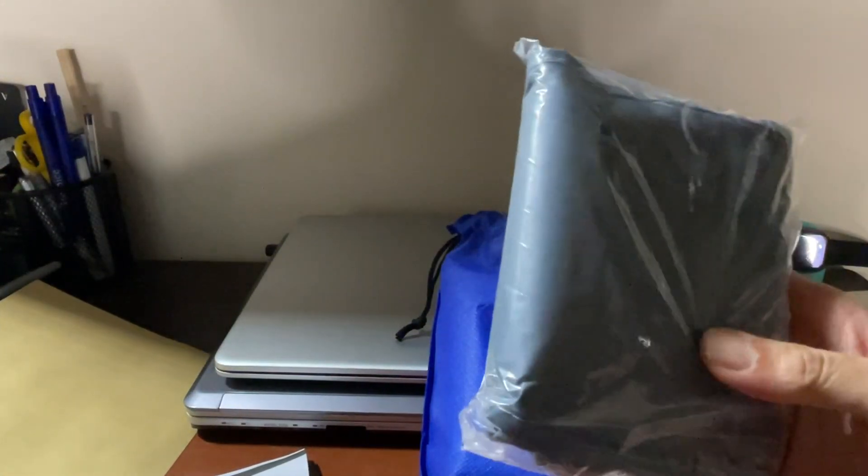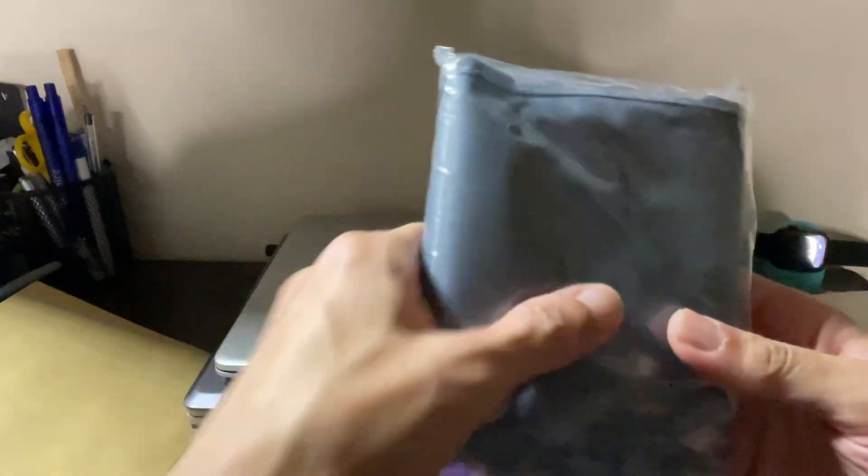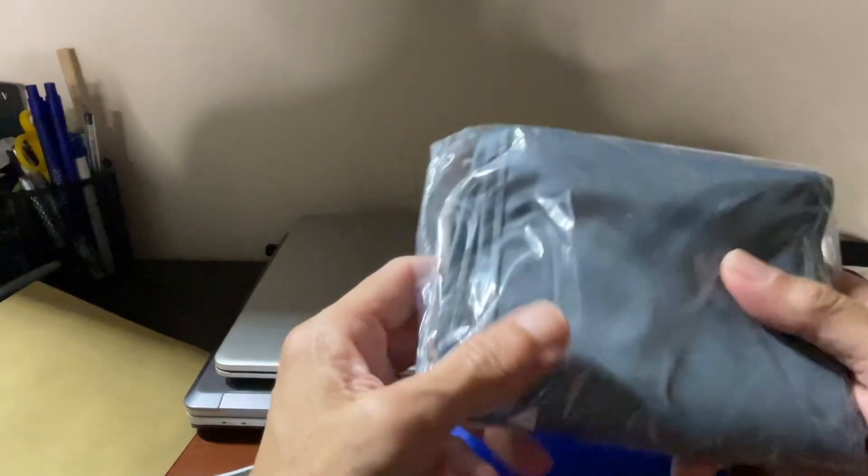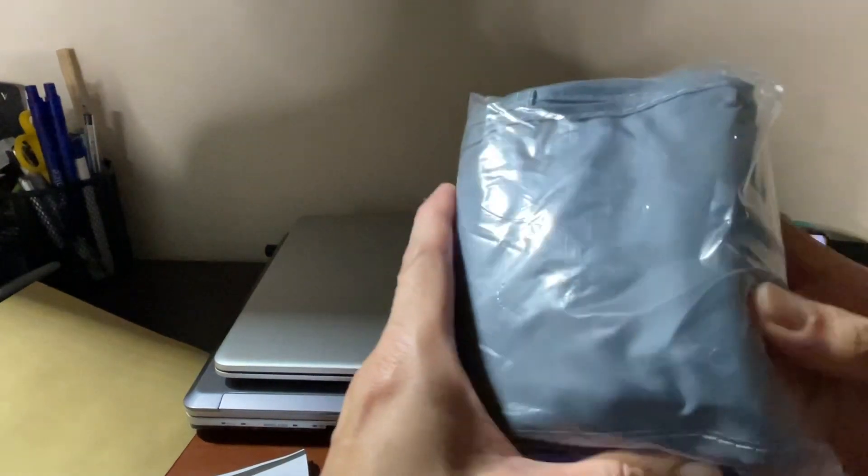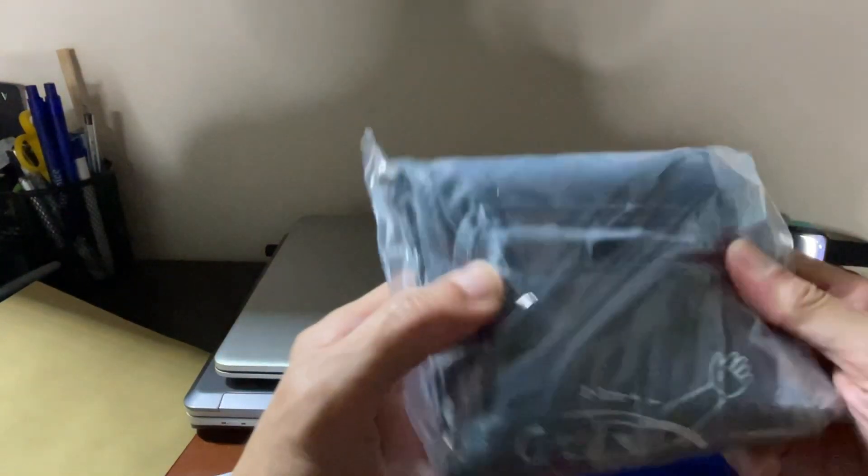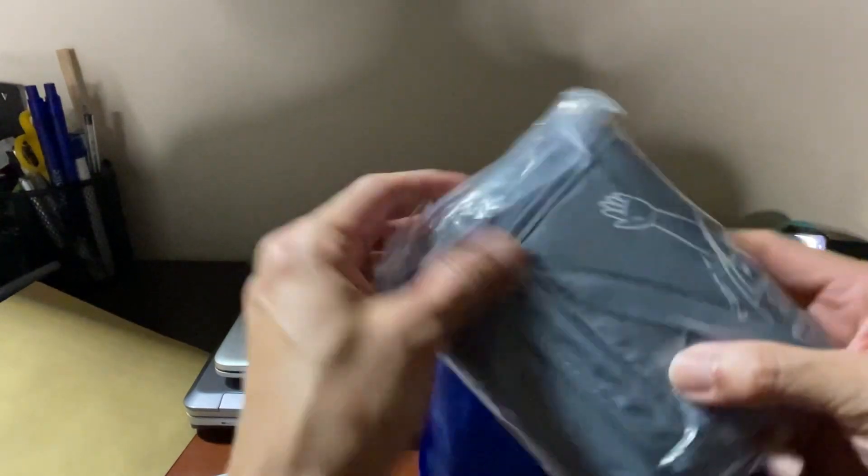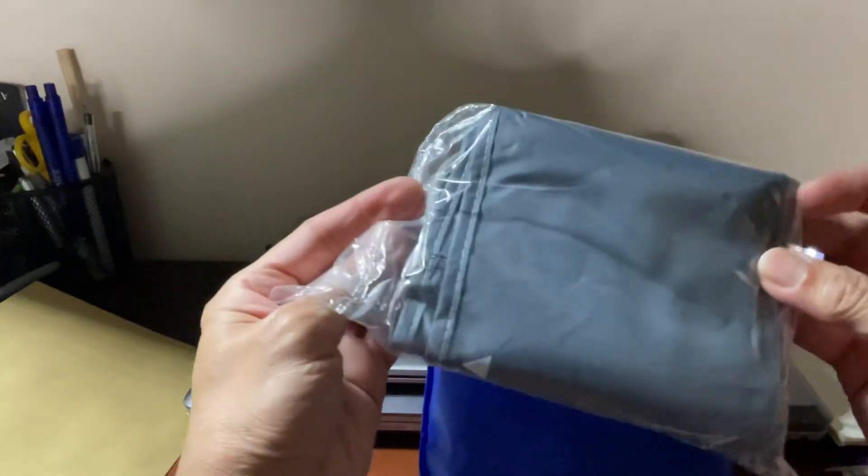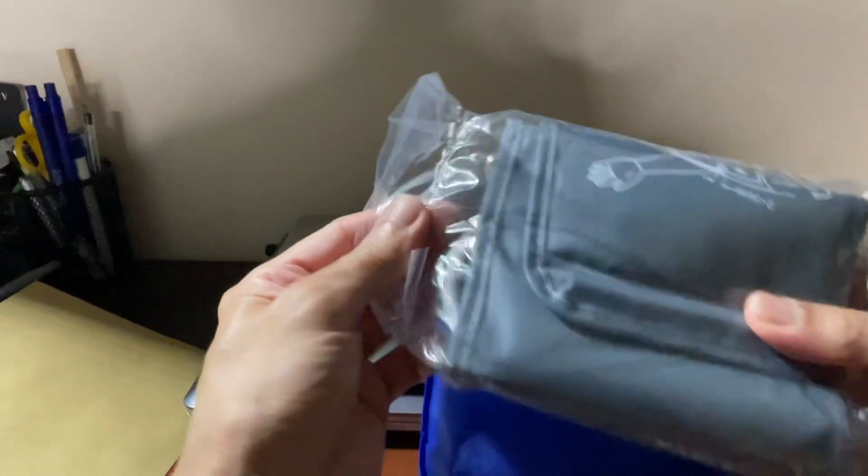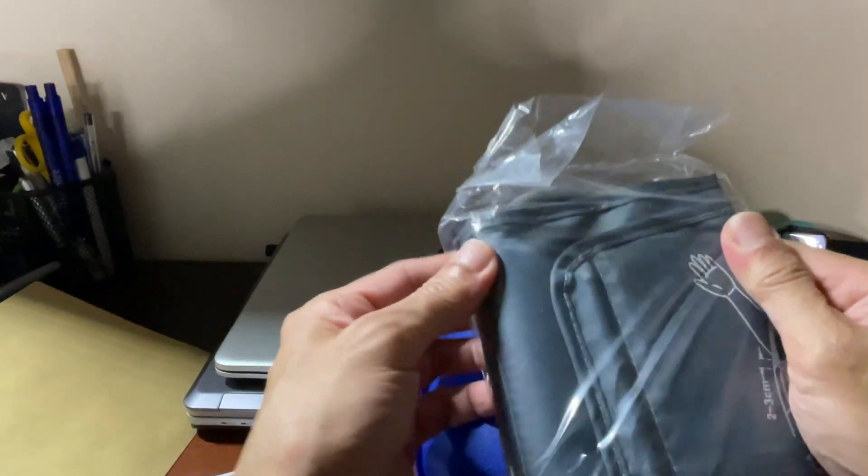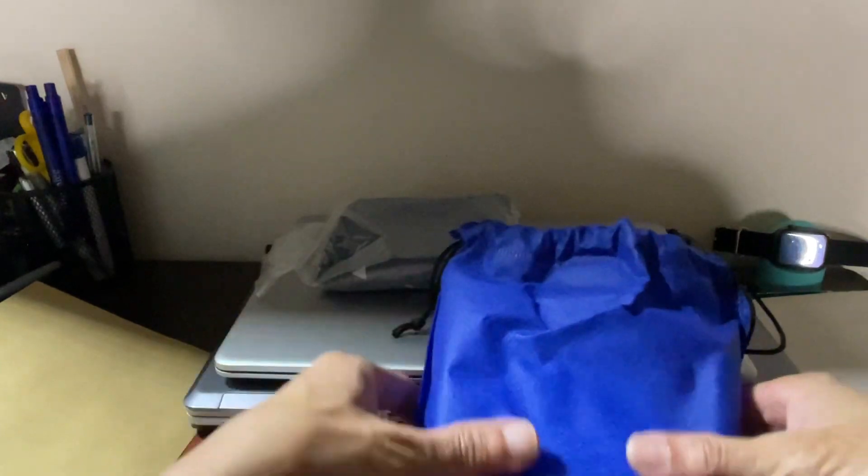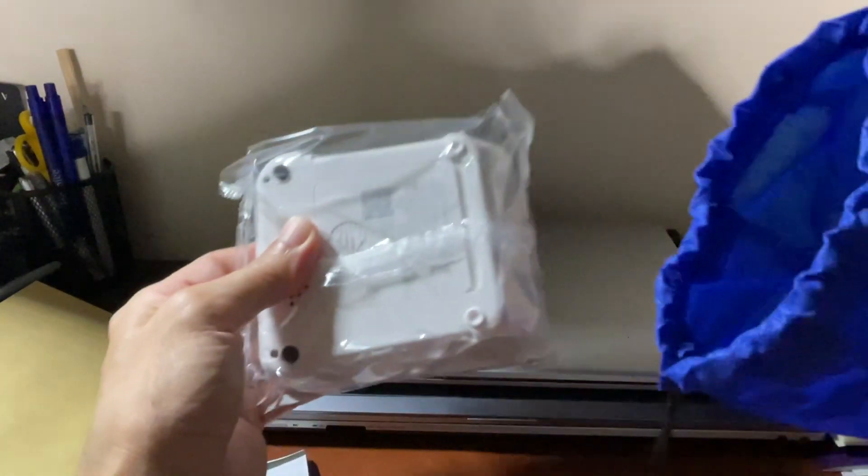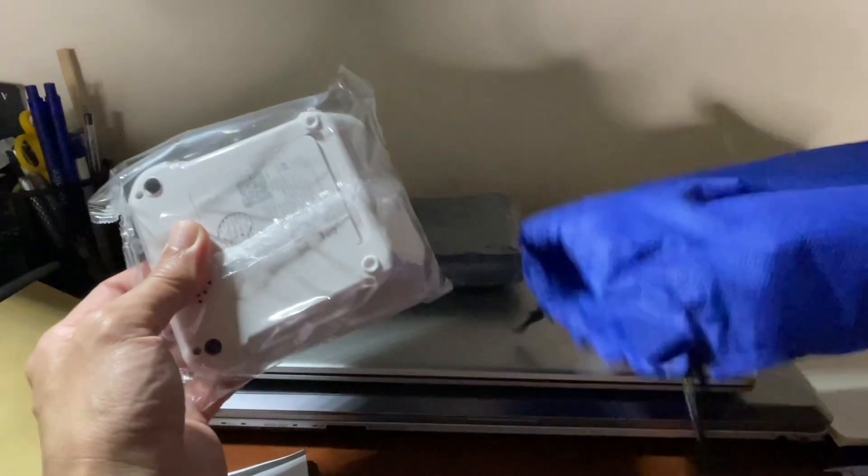This one also for the arm, the cuff tubular shape suitable for the arm. It's sealed, didn't open. That's empty.